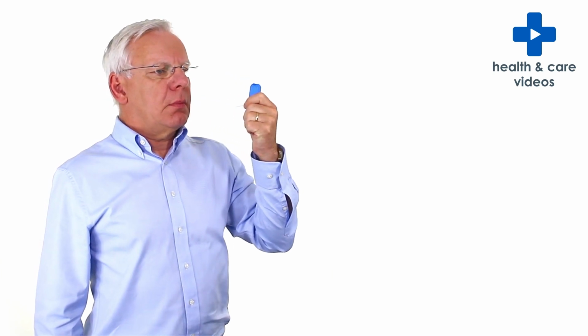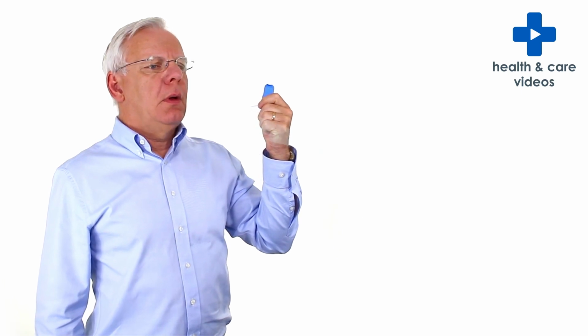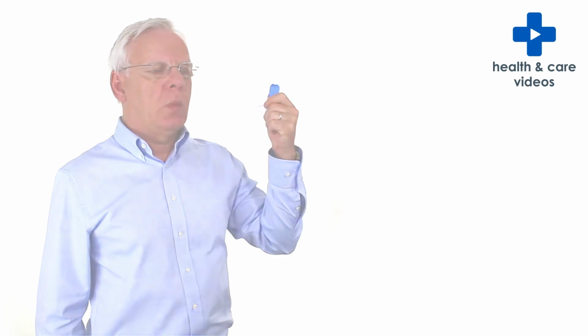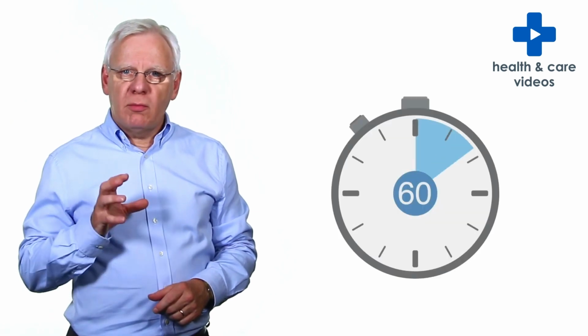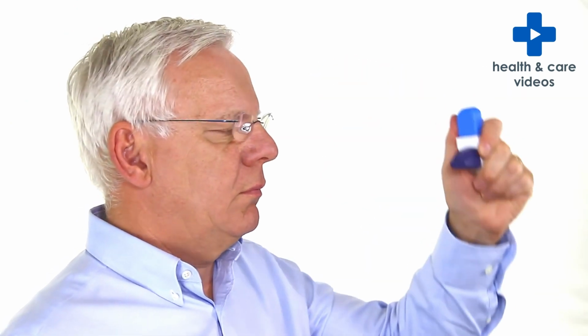Remove the inhaler from your mouth while holding your breath for at least 5 seconds. When you can no longer hold your breath, breathe out slowly. If your doctor has told you to take 2 puffs of the medication, wait for 1 minute before repeating the procedure. Make sure you shake the inhaler firmly before you begin.